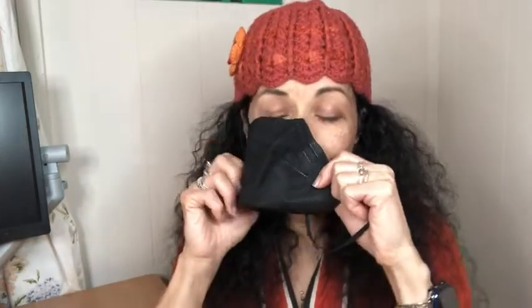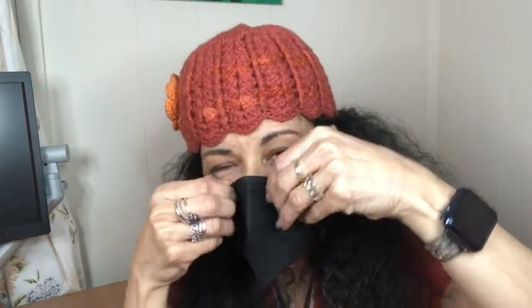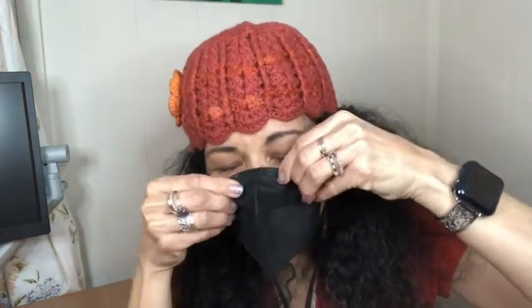I'm going to show you how it feels on — you can just see how easy it is to put on. And here's the nose piece. If you have a bigger nose you can open it up a little bit, and then you can form it right to your nose. It comes down and covers the bottom very nice and secure, and it's very soft on your face.